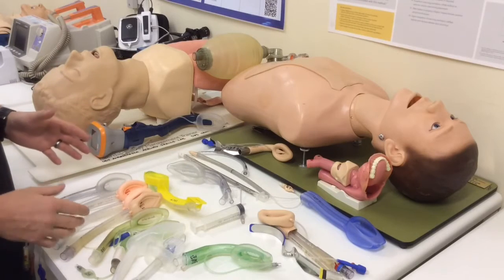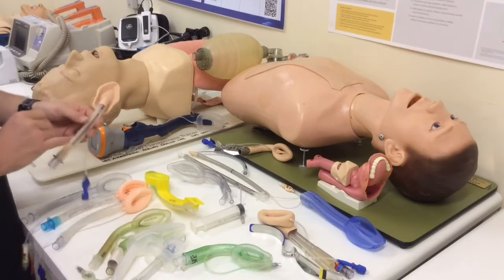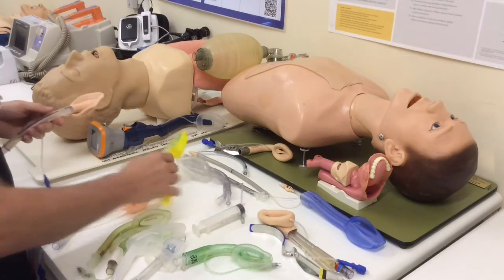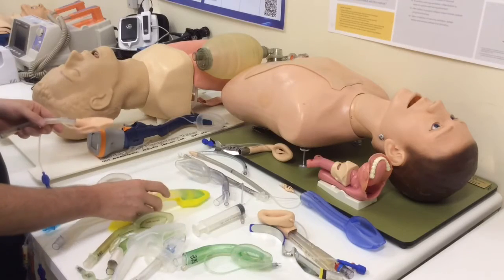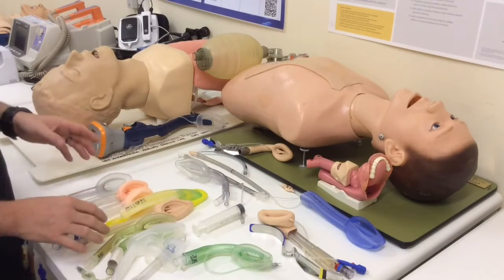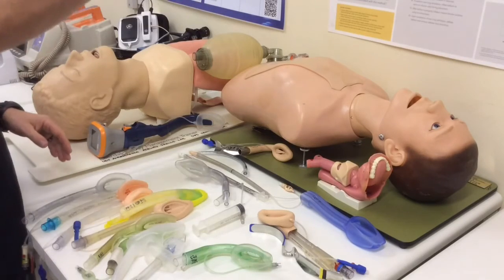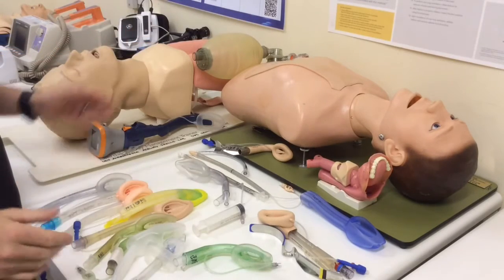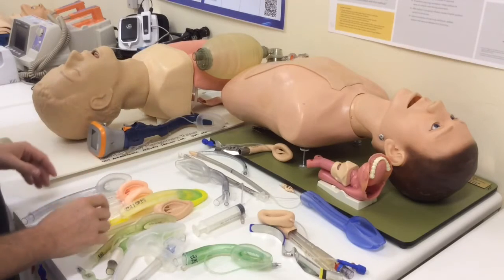Typical medium-sized adult, you're looking at about a size 4 across most of the devices. So an LMA size 4 is for 50 to 70, and an iGel size 4 is for 60 to 90 kilograms. Very, very similar kind of sizing. So select the sizes appropriate for your patient's ideal body mass. Don't look at the lady who's 1.5 meters tall but weighs 130 kilograms and think that you're going to need a size 6 for her, because I promise you're not going to get it in.